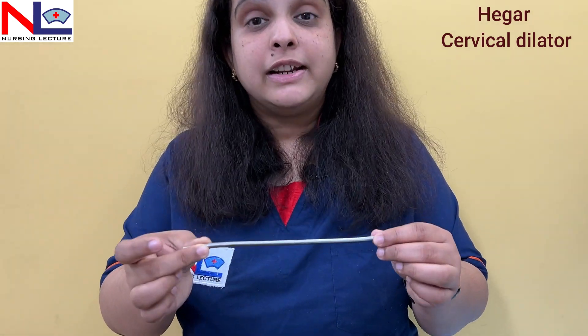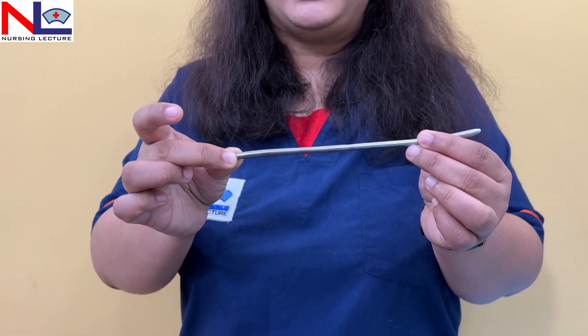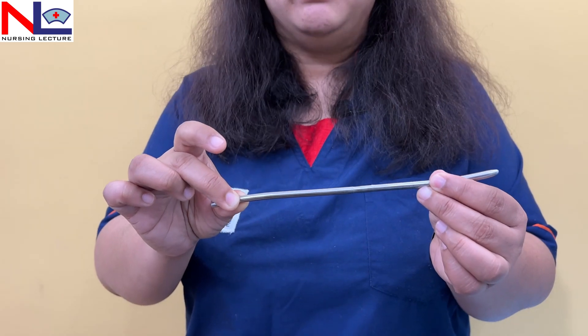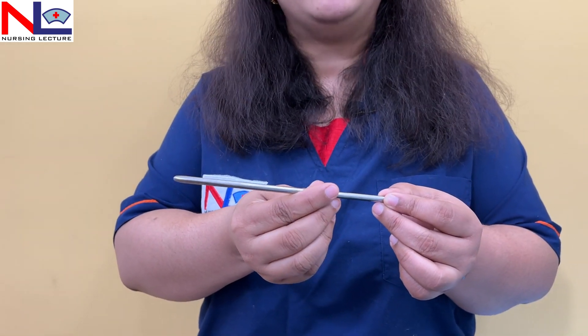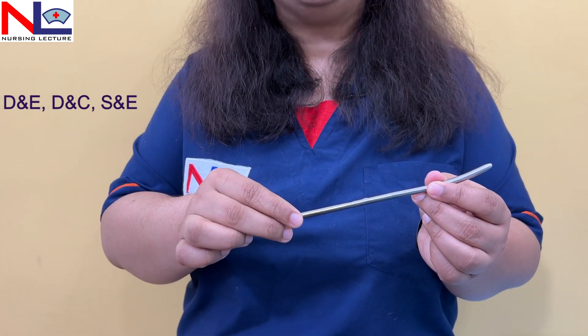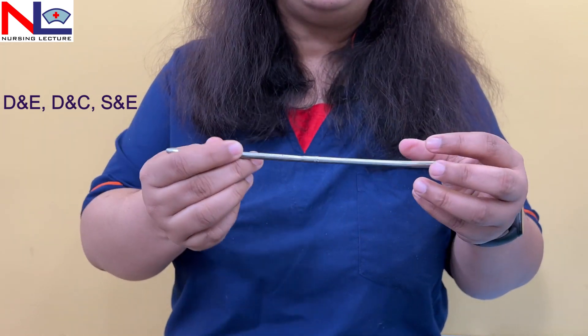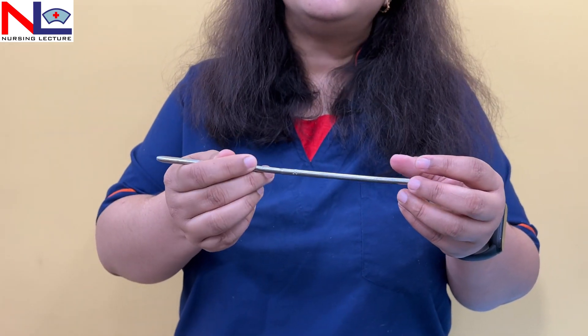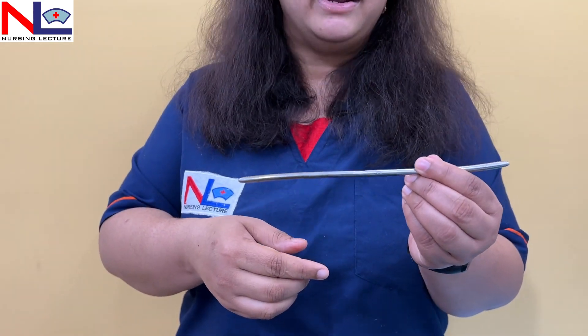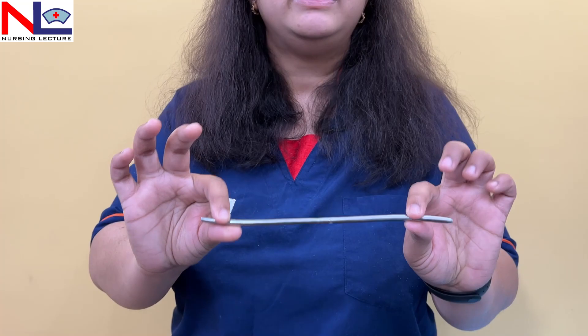The next instrument is the Hegar dilator, which is a cervical dilator used to dilate the cervix. It is needed for many procedures such as MTP (medical termination of pregnancy), including suction evacuation, dilatation and curettage, and dilatation and evacuation. In all such procedures we need to dilate the cervical canal, and for that we use the Hegar dilator.